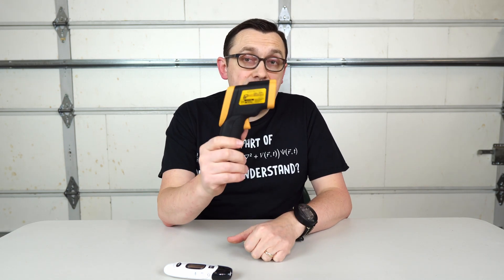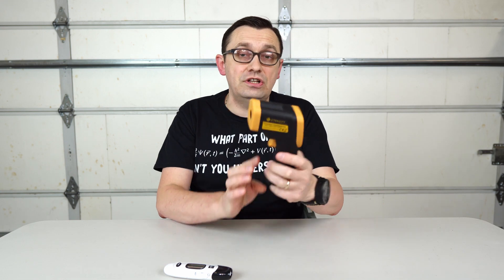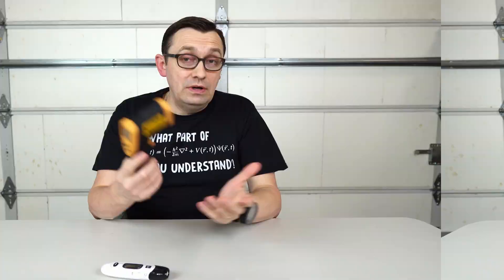I'm pretty sure you saw at least once in the store or somewhere else when you enter a facility they're checking your temperature. Most of the time they actually use these types of thermometers. Well, let's see how accurate this thermometer is for checking body temperature.